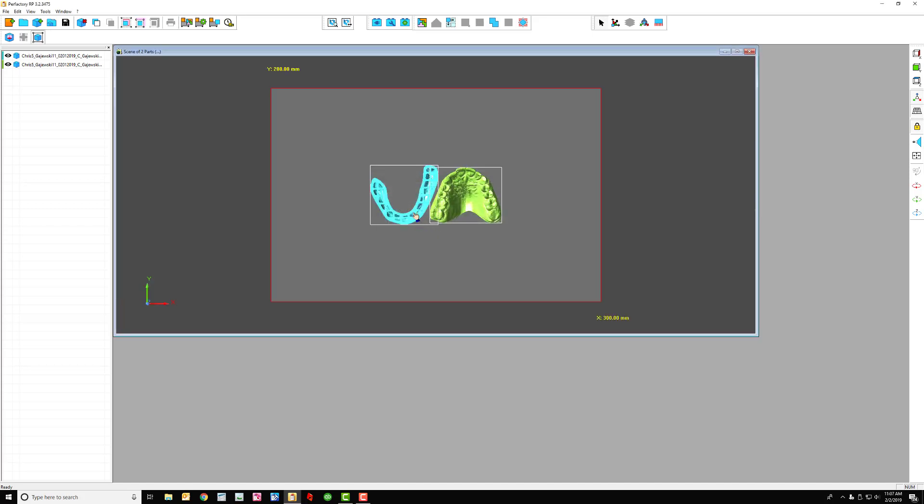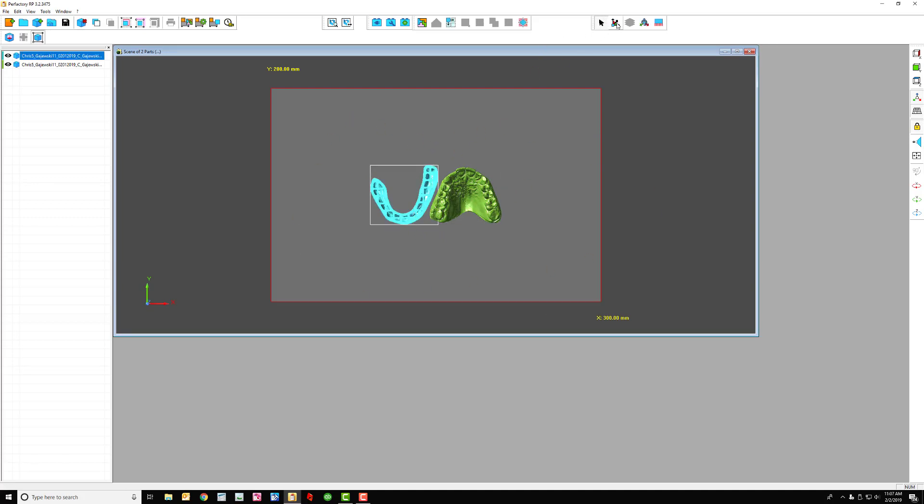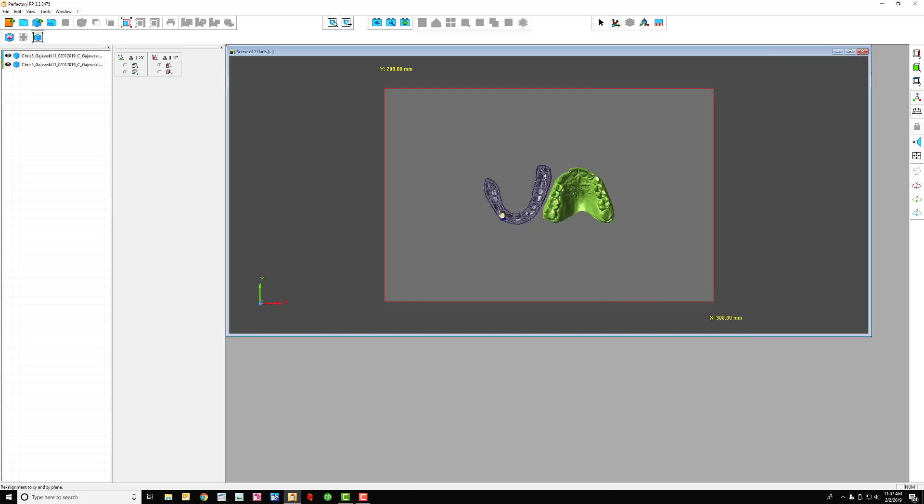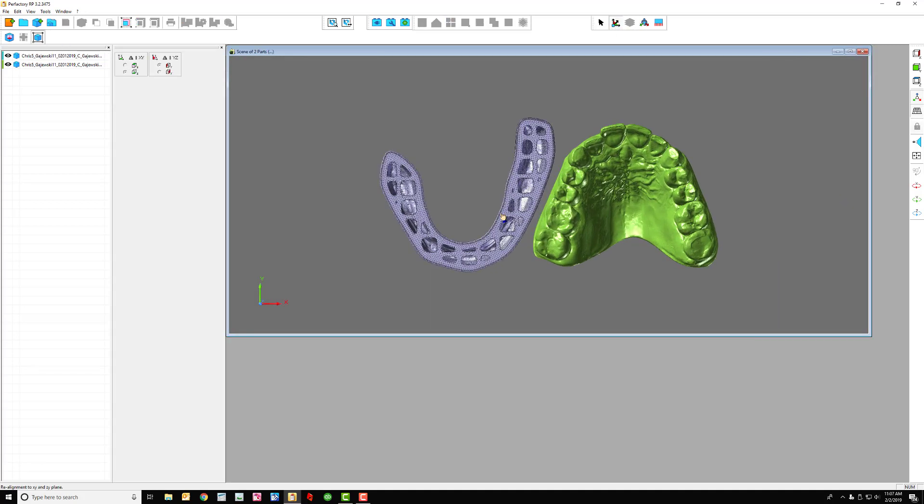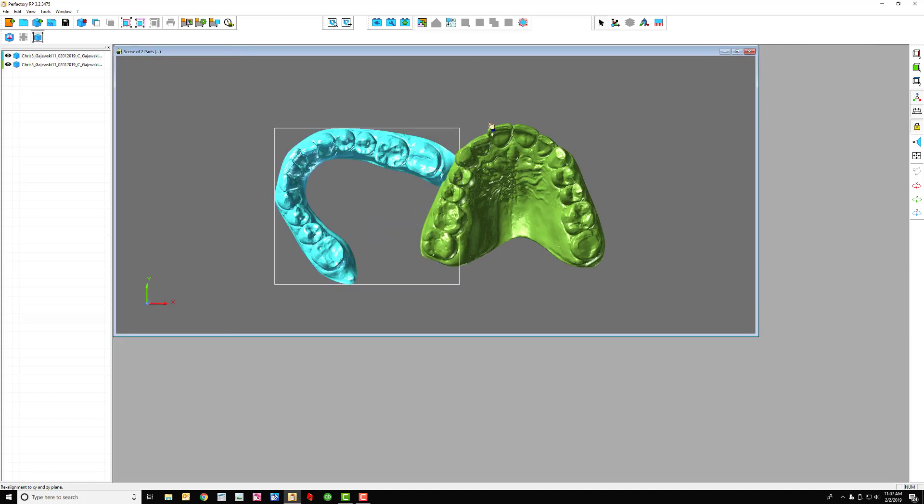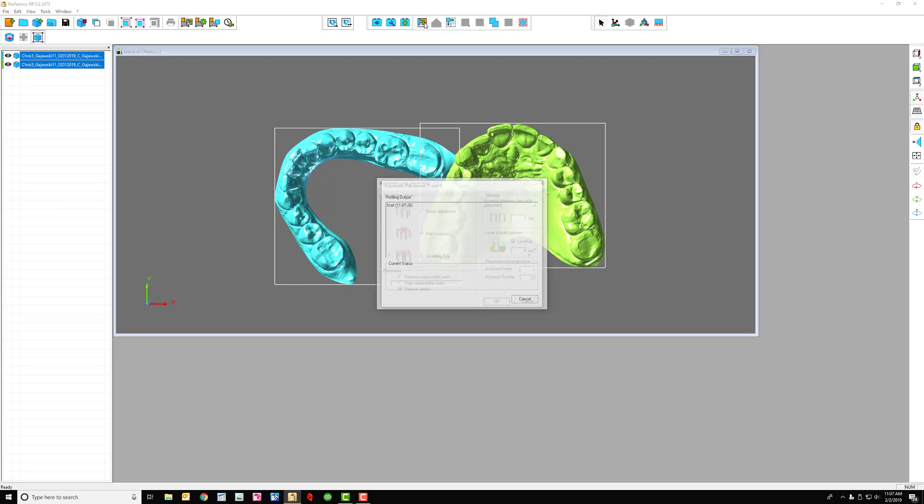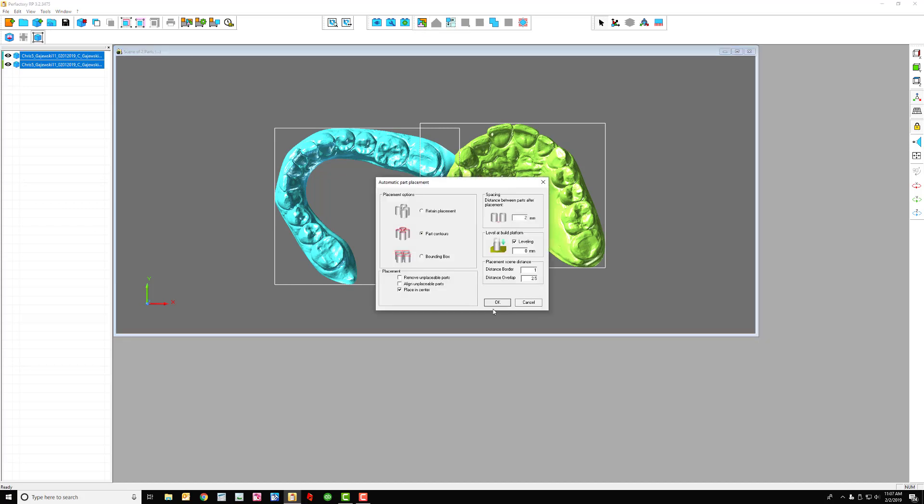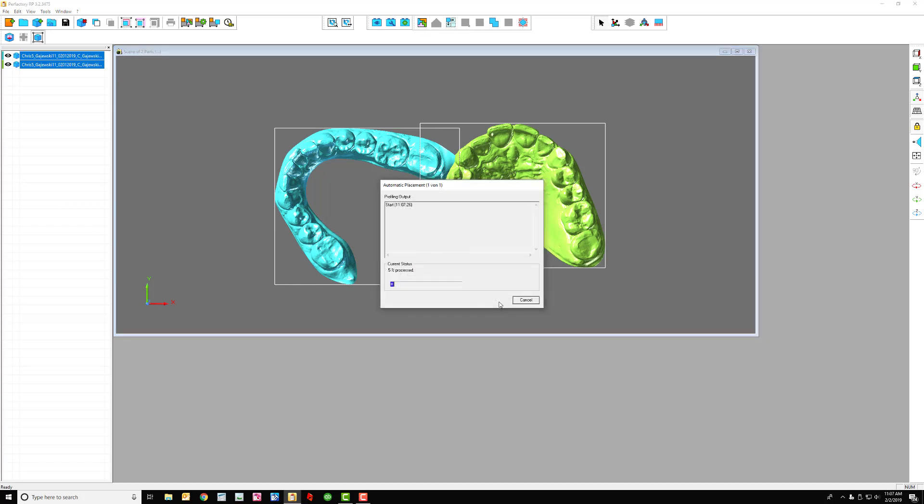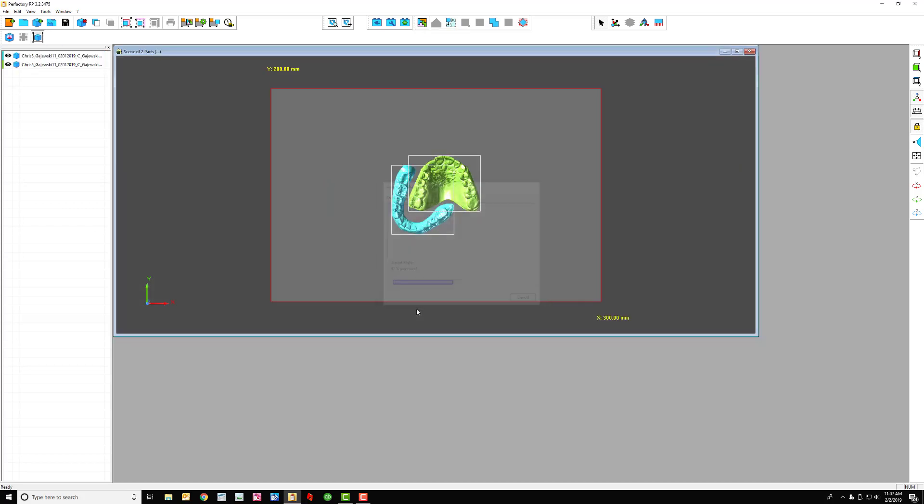And of course this one's upside down, so I have to go out and come back in. Now typically I got a bunch of lowers that I have to do this to. I go into realignment, bring up the mesh, and just do this process again. And then do this process again with the placement. Okay. And then that's it. It's ready to build.